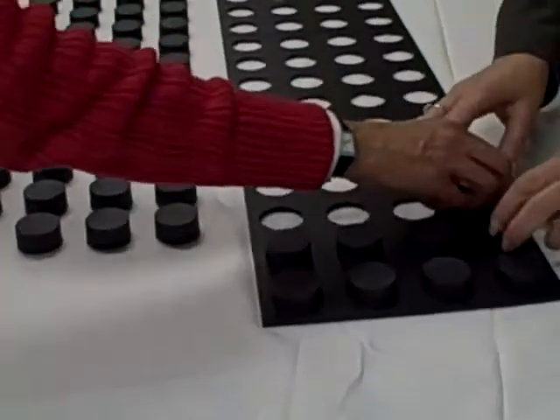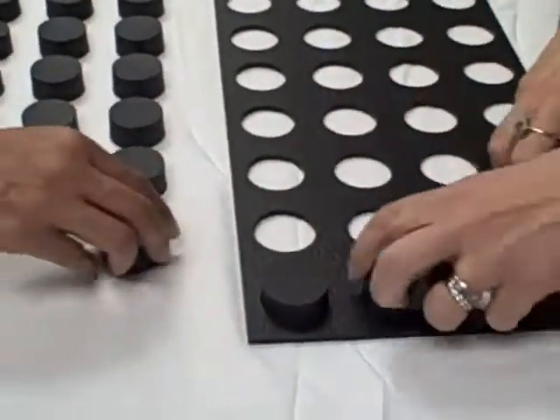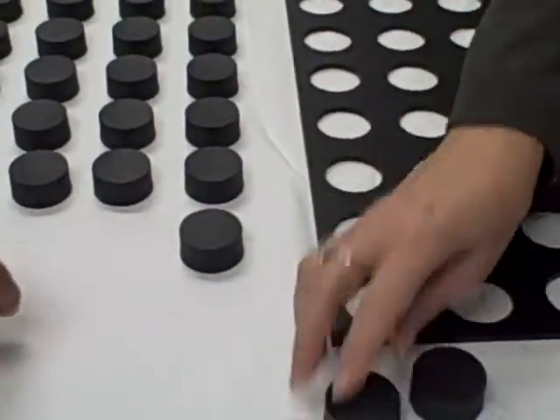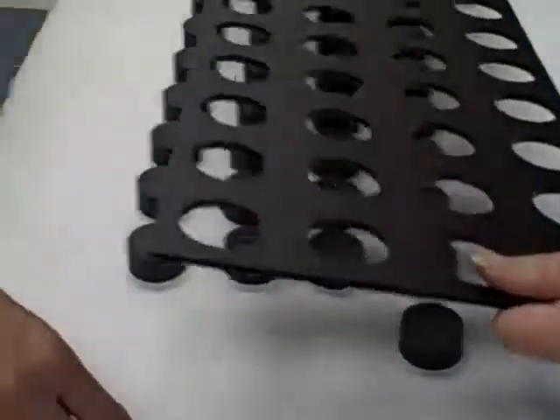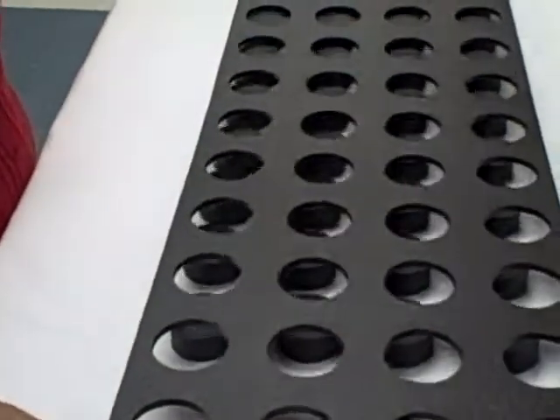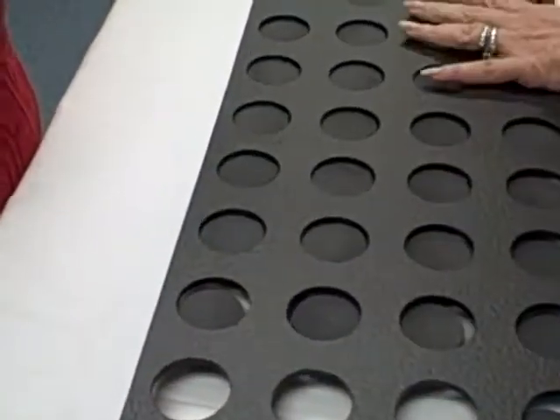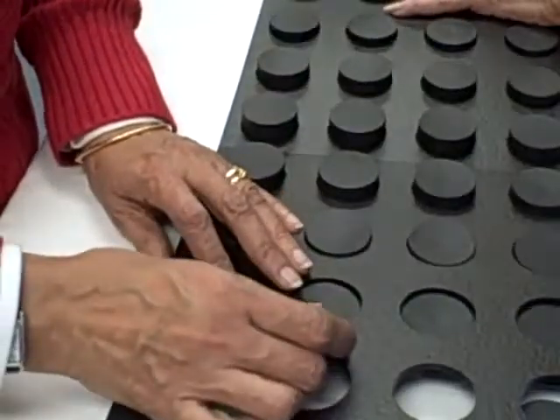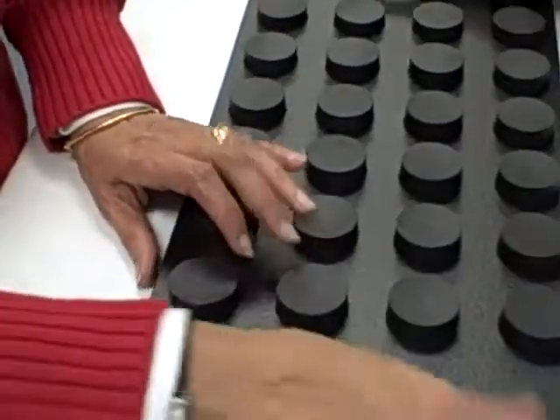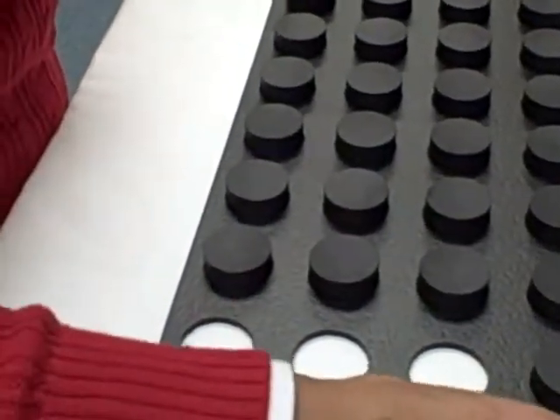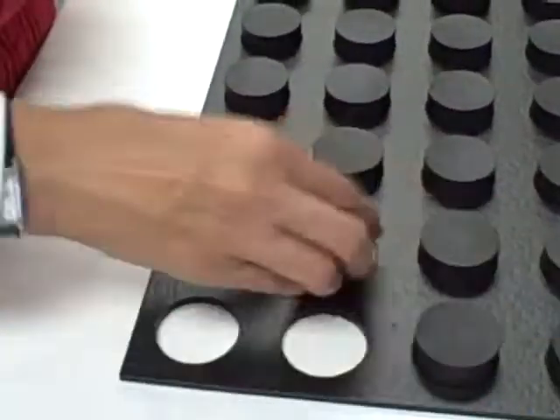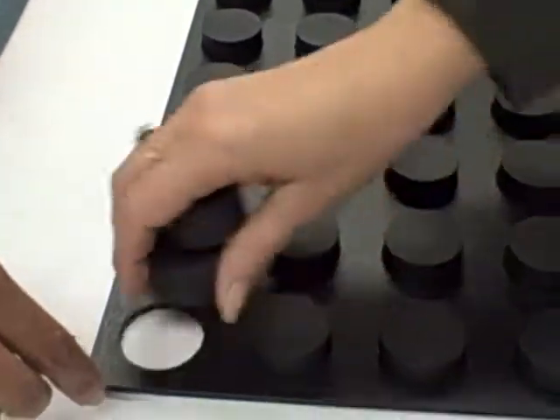Okay, the next part of the test is called the turning test. Let's see if we can just lift this back up. You would do this after they had placed all of the blocks. So you wouldn't be trying to do this, actually. This is not the best way to do this, but the turning test, all the blocks would be in there.